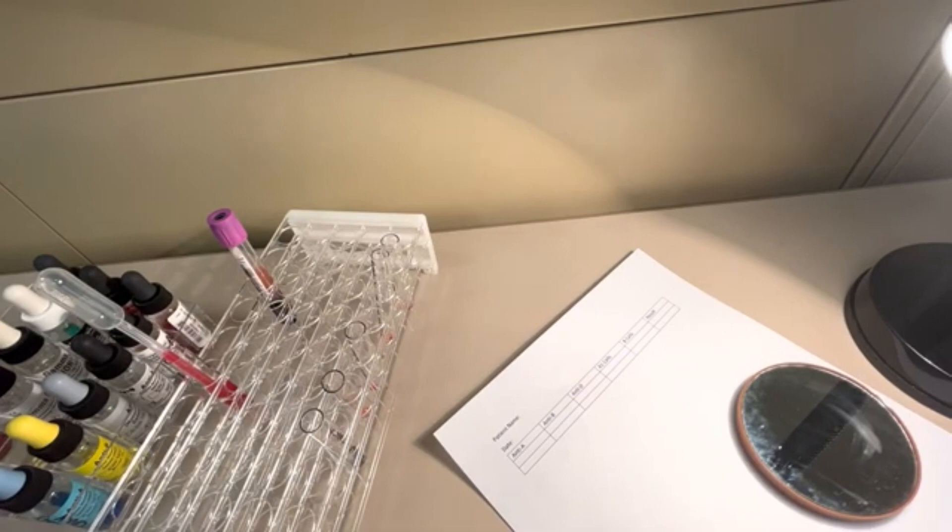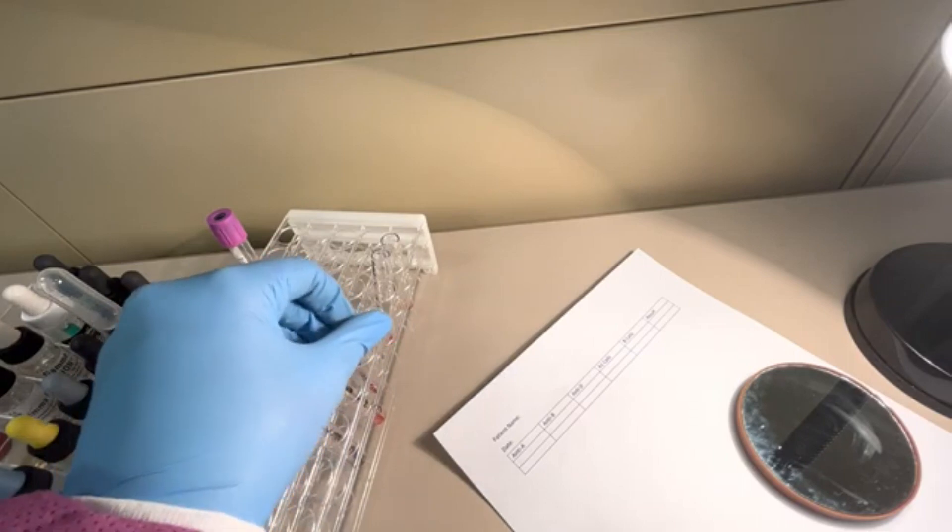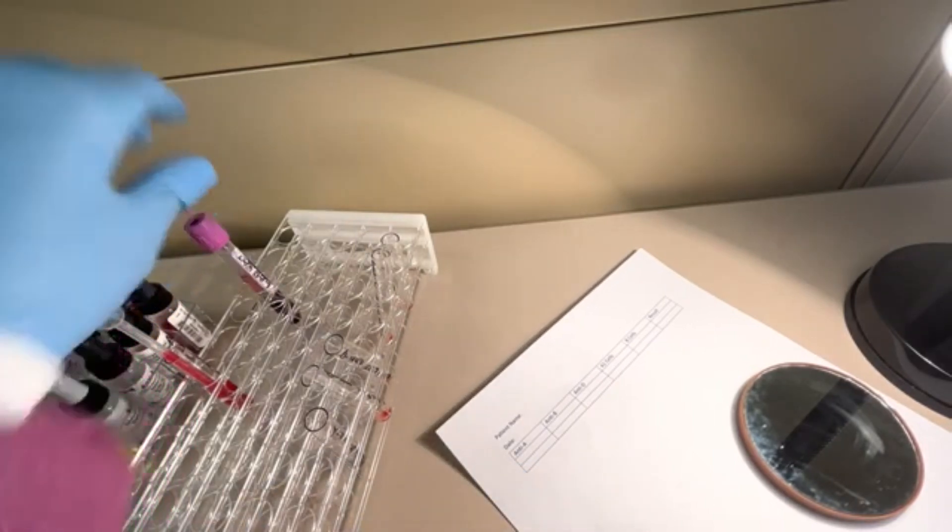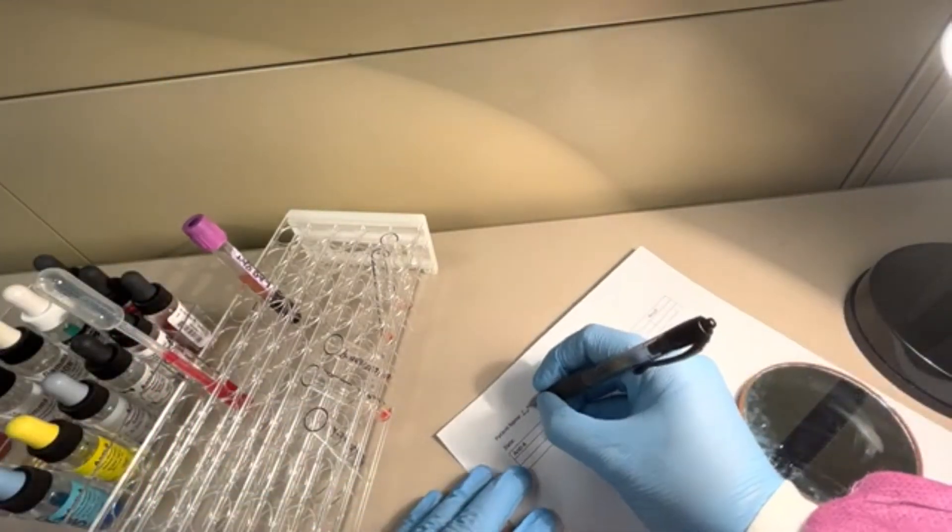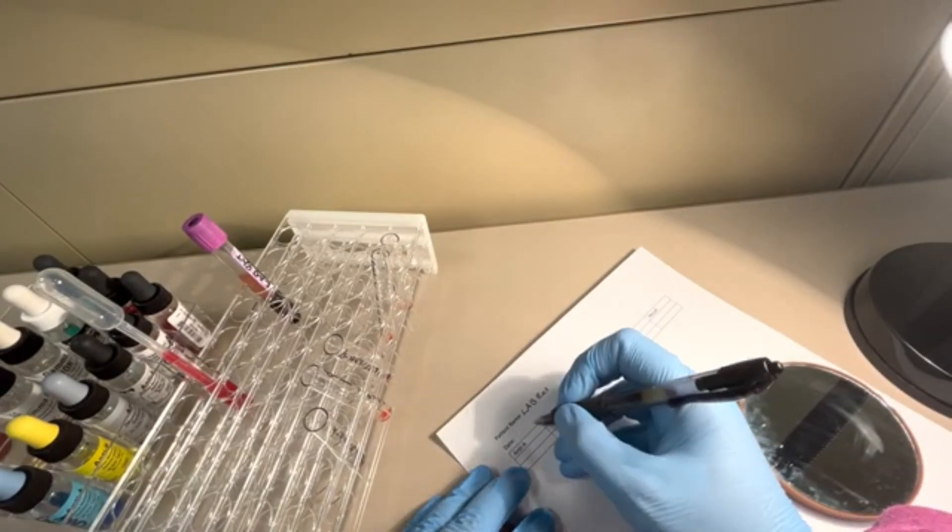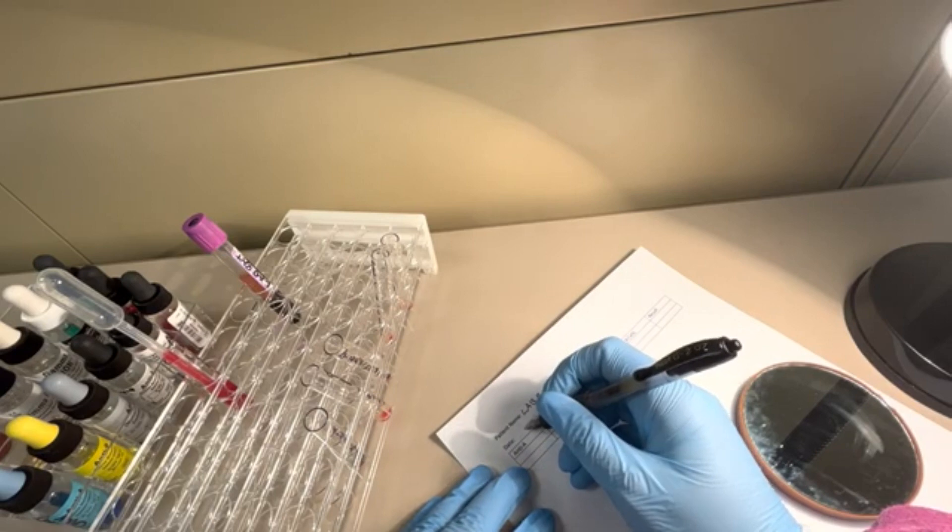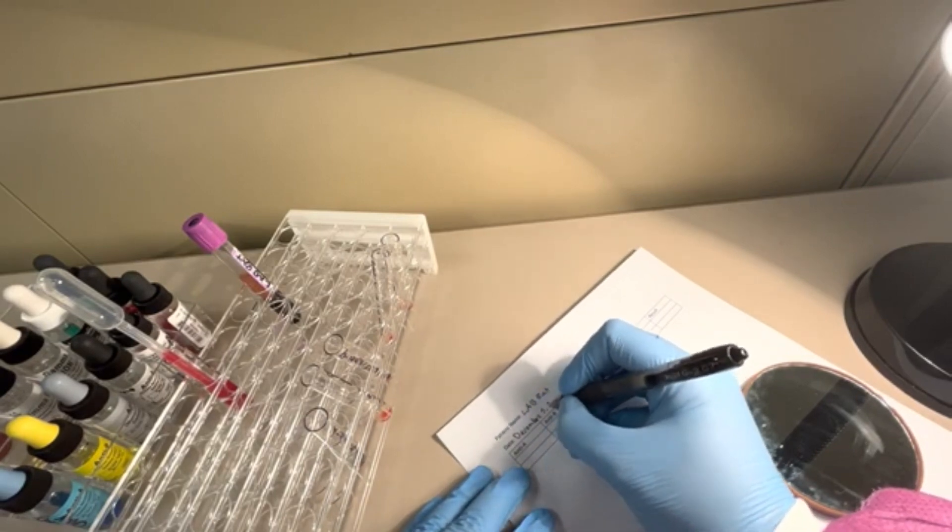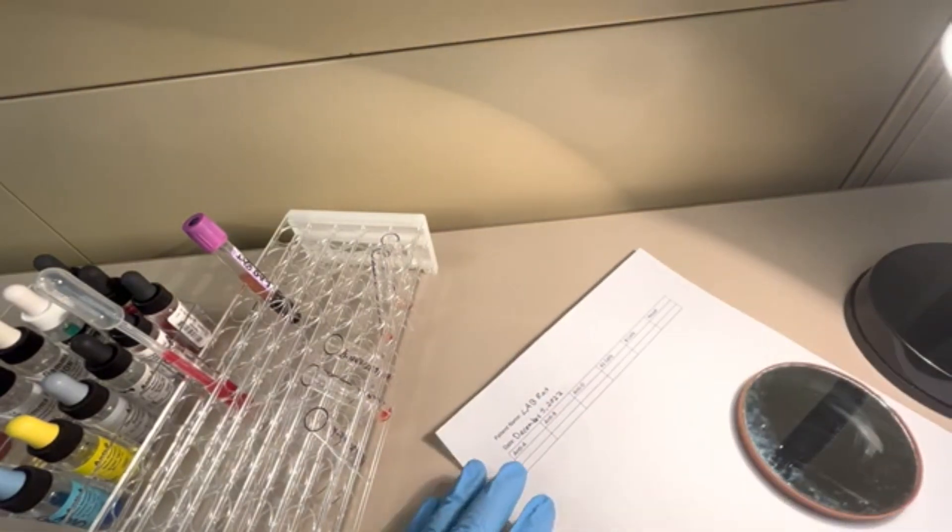Okay, so we're back. I just centrifuged those patient sample tubes in the centrifuge for 15 seconds, and I've put them in order, the same order that they were in this rack. What I'm going to do first, this is my result sheet, is I am going to put the patient's name, lab rat, and the date, December 5th, 2022.